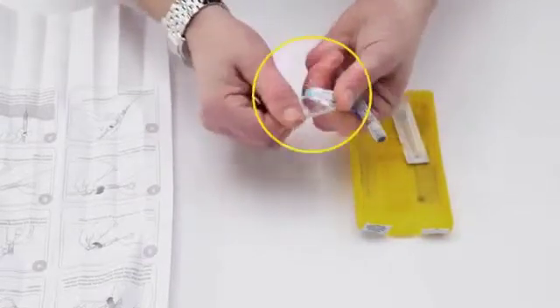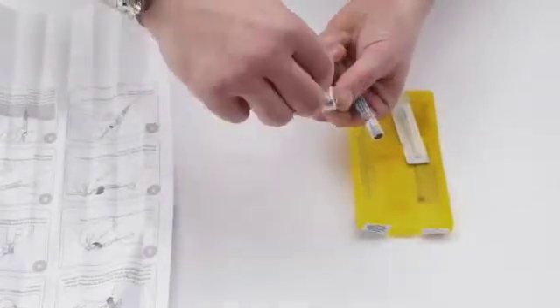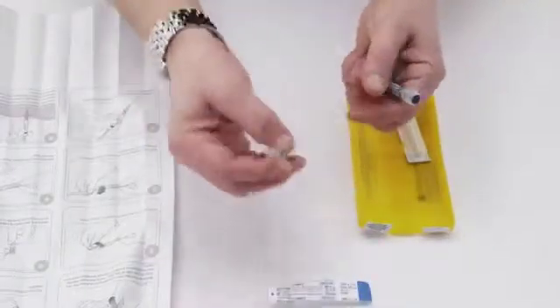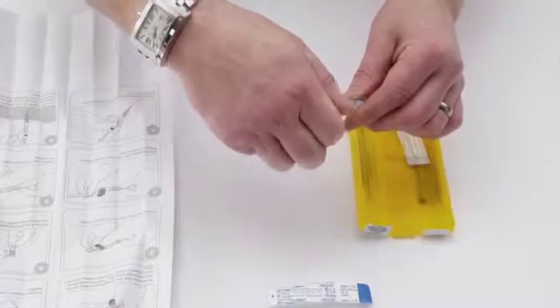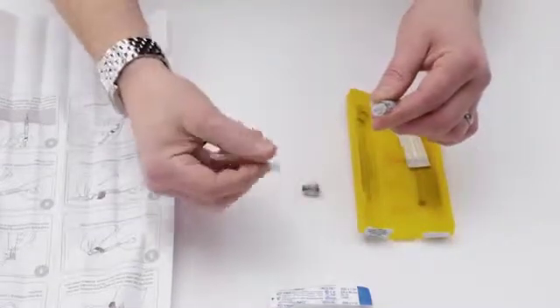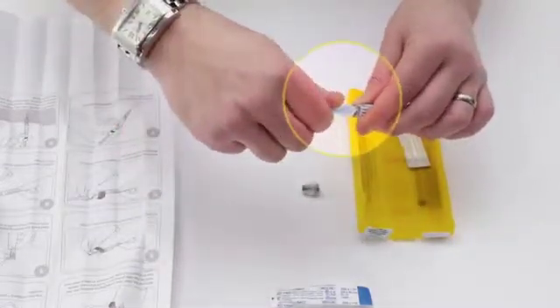Peel back the backing paper from the needle packet and remove the needle, keeping it in its protective sheath. Unscrew the clear plastic top from the syringe. With the needle still in its sheath, screw the blue fitting onto the syringe.